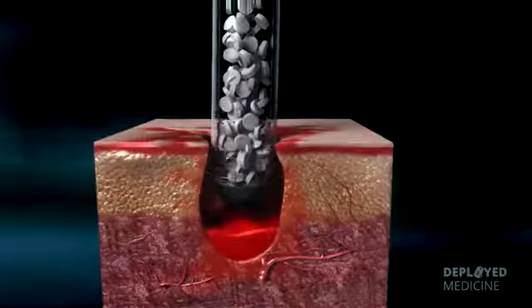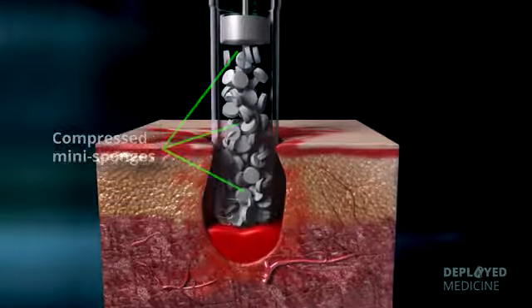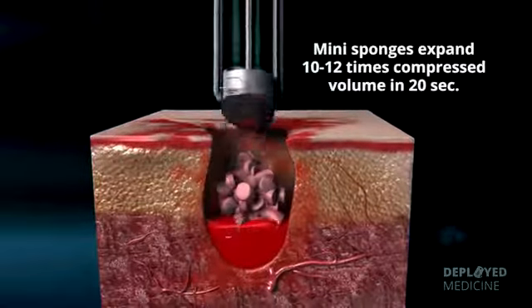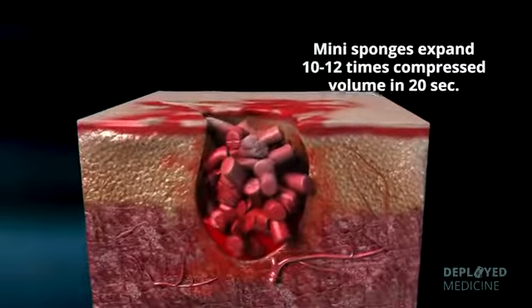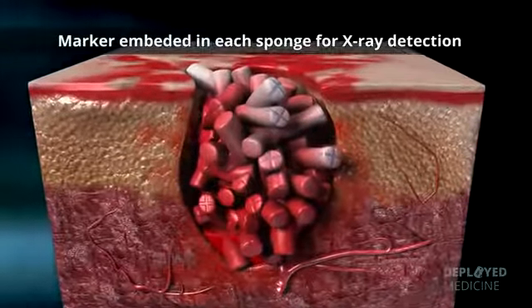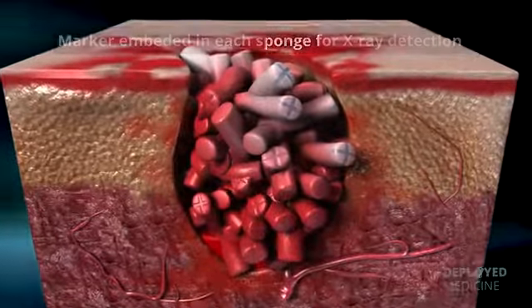The XStat contains compressed mini sponges. Upon contact with blood, the mini sponges absorb blood and expand to 10 to 12 times their compressed volume within approximately 20 seconds. A radio-opaque marker is embedded into each of the mini sponges to make them detectable by X-ray.